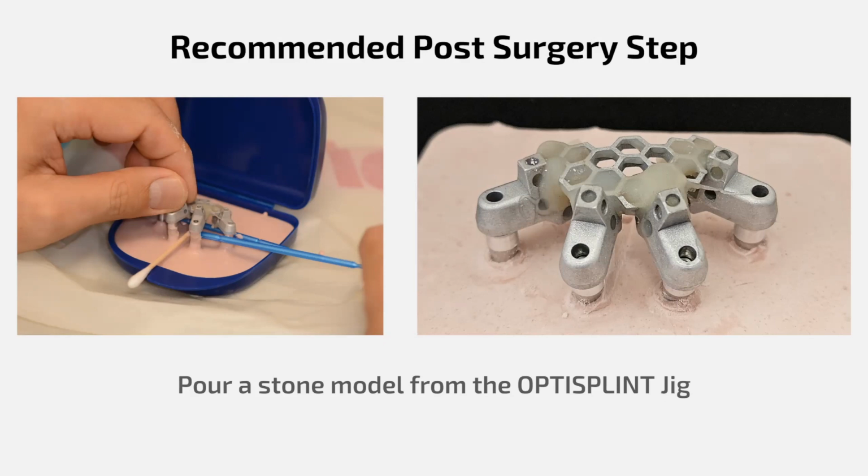The other option you can use with the stone model is to cement Ti bases. So regardless of the accuracy of your print or your record or anything, having the stone model to cement Ti bases really makes it so that you know whatever you put back in the patient's mouth is going to be very, very passive and very, very accurate back to the source, right? And that's what's really nice about having a stone model.